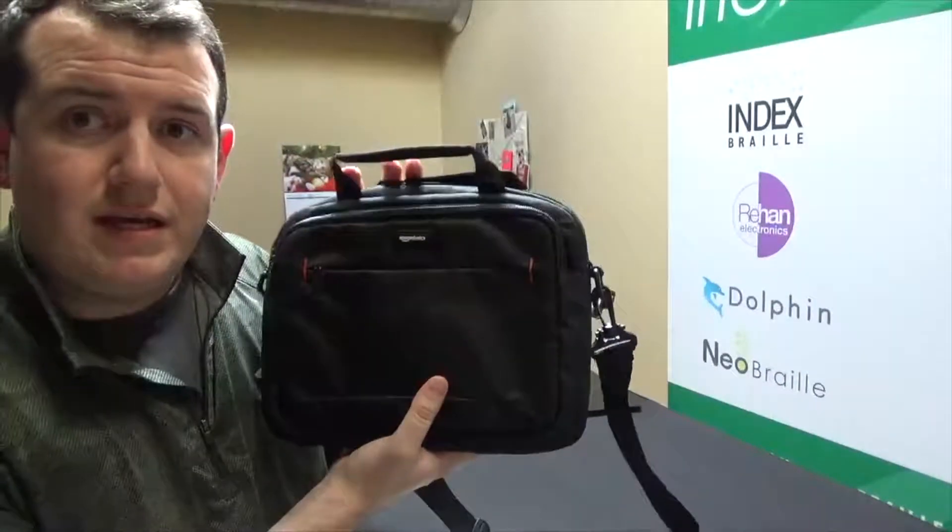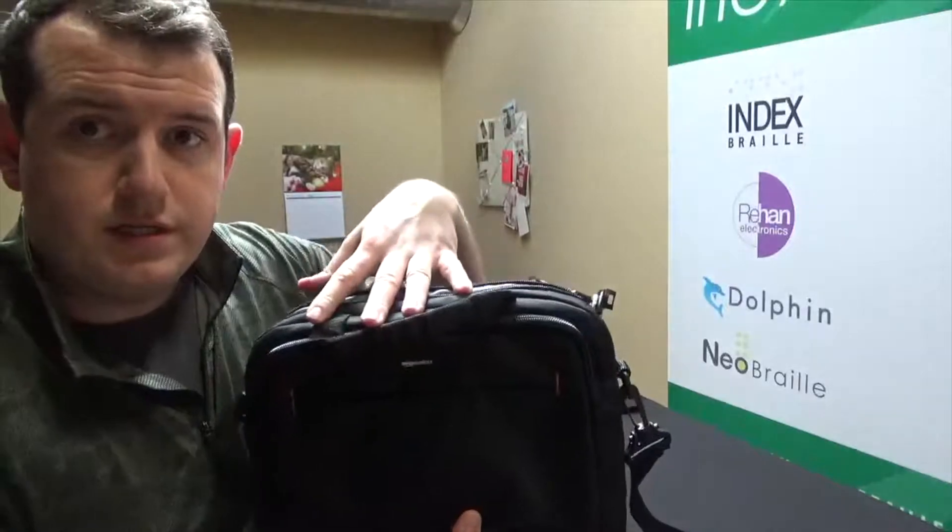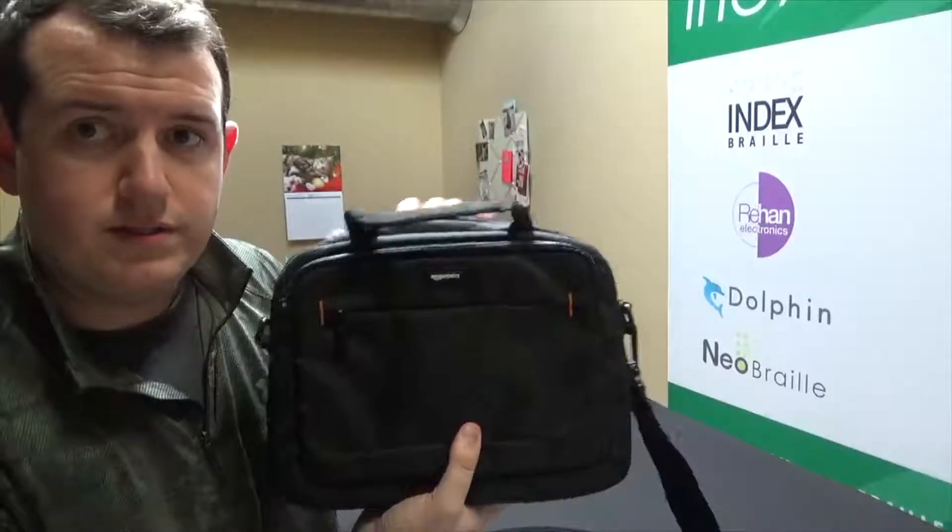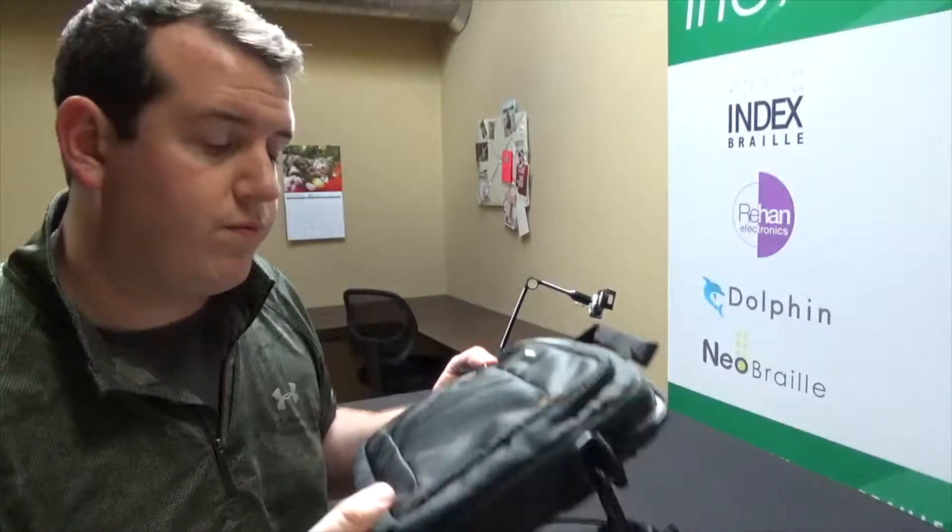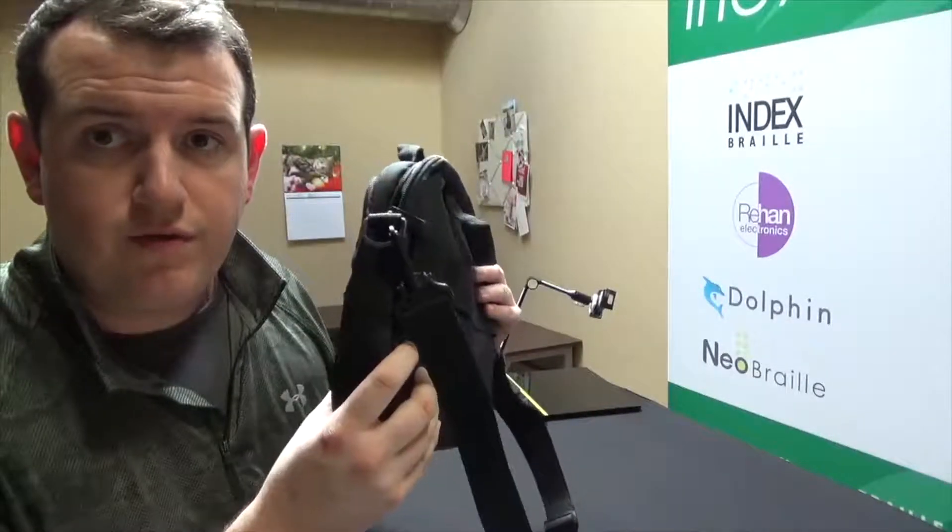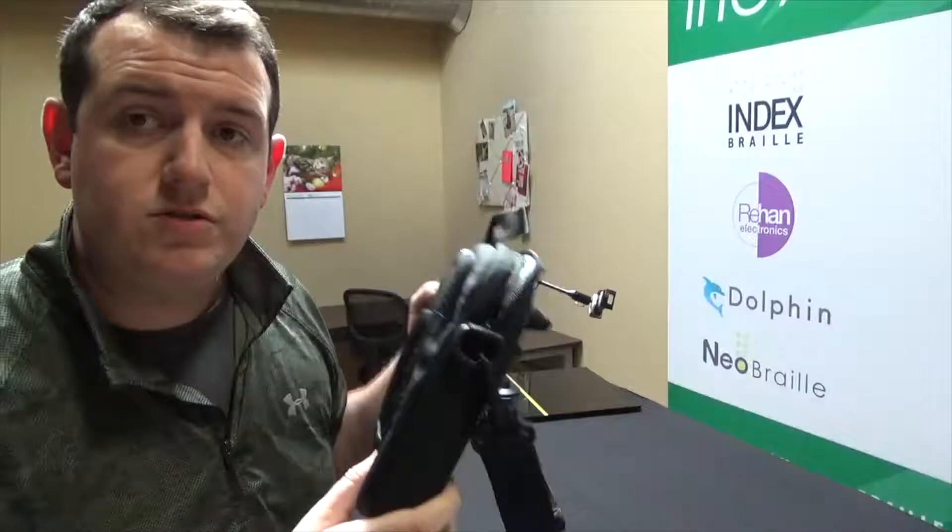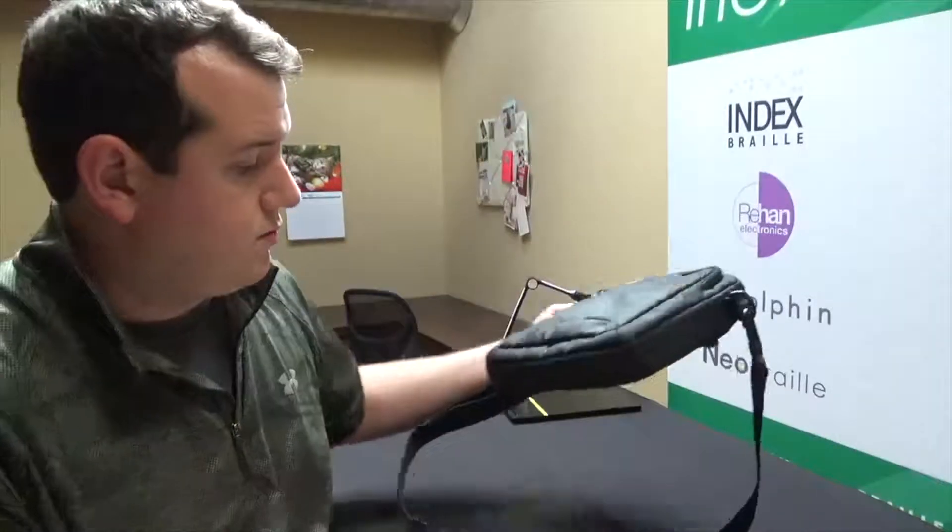And last but not least, we also have a carrying case that you can fit your other accessories and things like that inside, including your tablet and pack it around with you. So if you're mobile, you're on the go, you're taking this from place to place, you're traveling, this is a really nice feature to have, especially if you have other things besides just the tablet. So that is our carrying case as well.